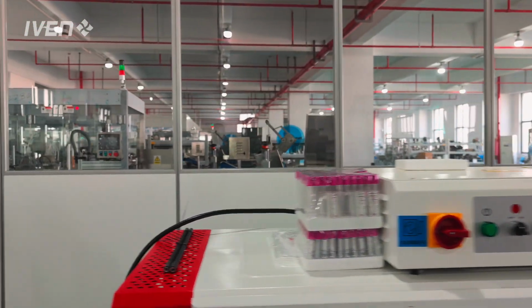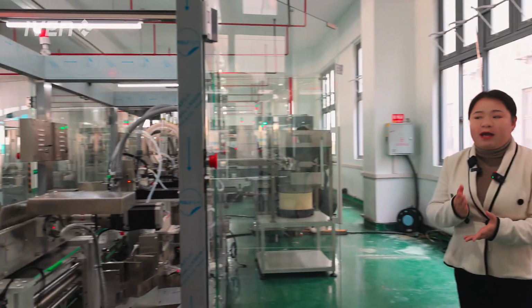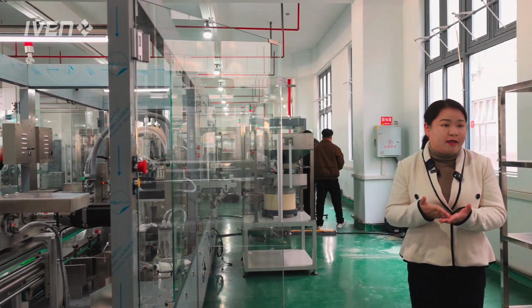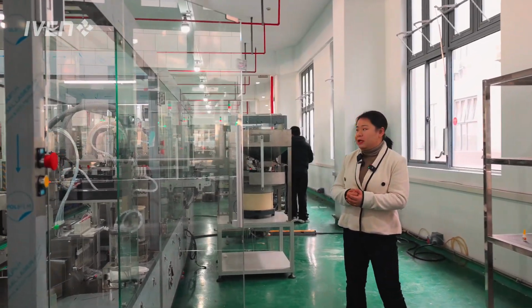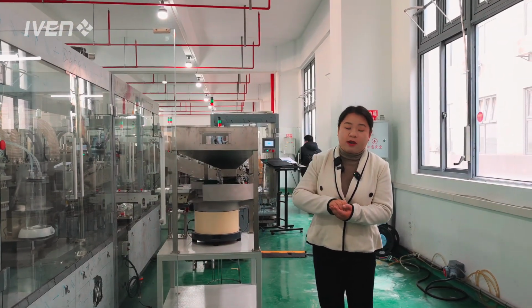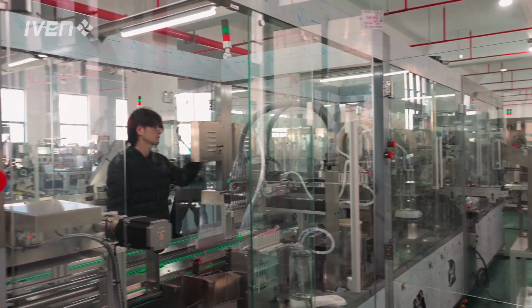This is an intelligent production line. Intelligent production line means, based on the basic production actions of the entire line, we have a tube loading, a filling and spraying station for chemicals, and also a capping station, a vacuuming station, and the package transfer into the foam tray and then shrink package. These are the basic standard procedures and stations.